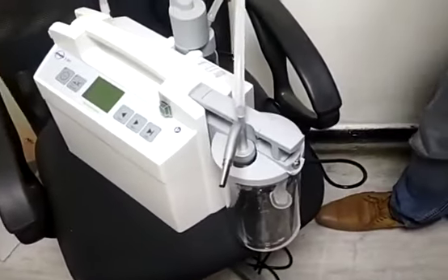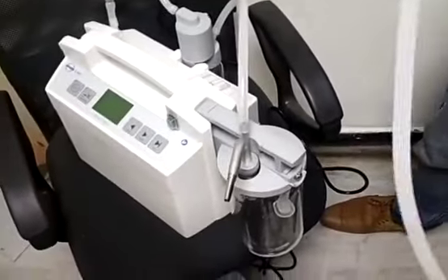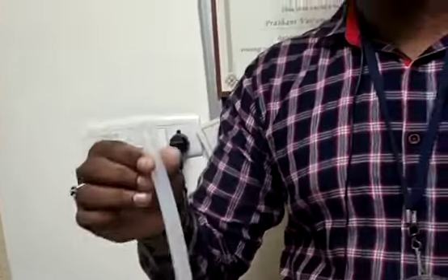One more tube — we are going to connect back to the patient. This is a lengthy tube. In this one, you are going to connect back — the octopus or similar connector.